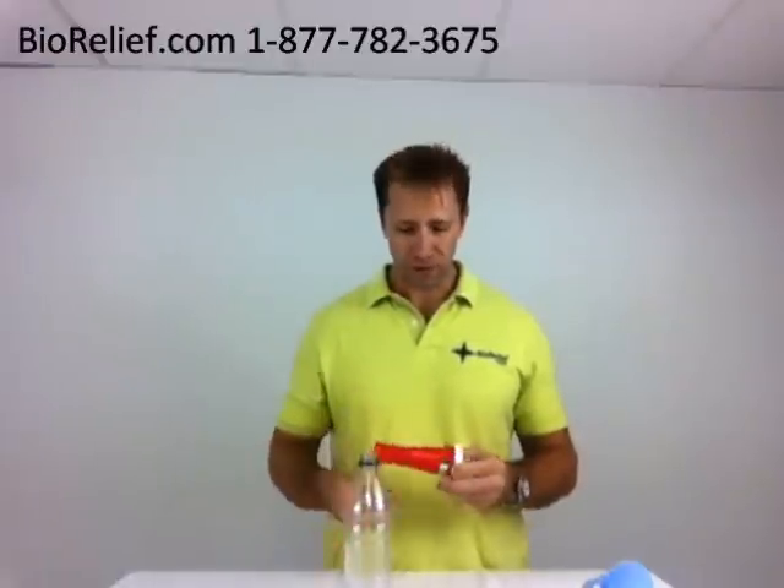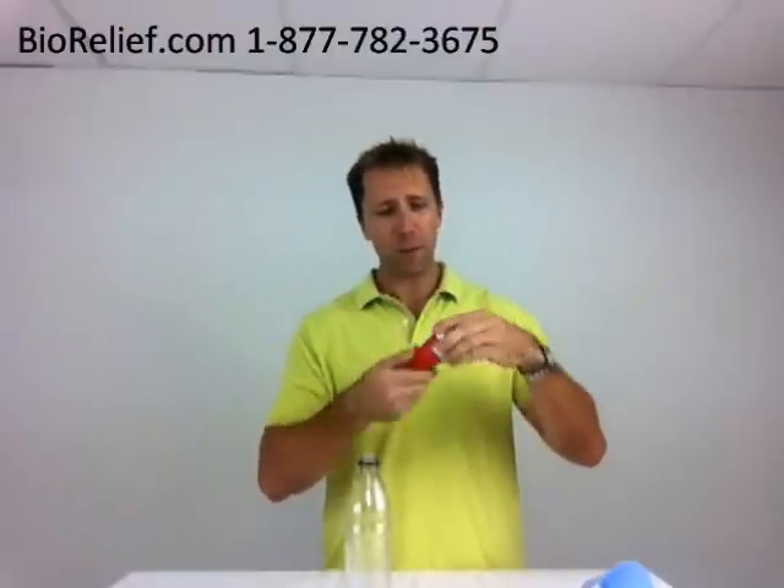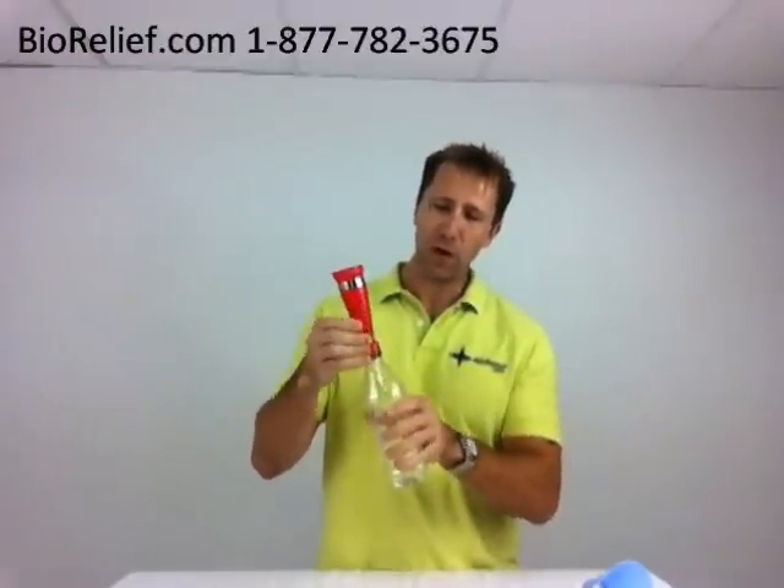Boat, plane, wherever you may be in an emergency. Now the G-Funnel is just what it is — it's a funnel with a cap here that screws on top, and it has an adapter here which allows you to screw this on to the bottle.